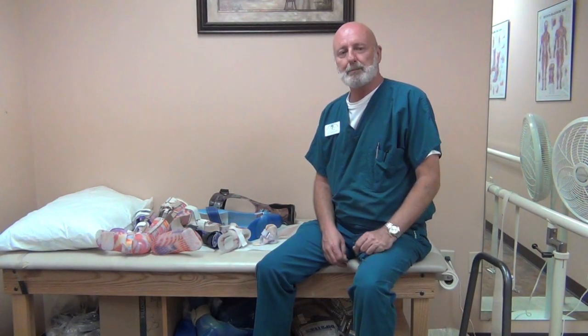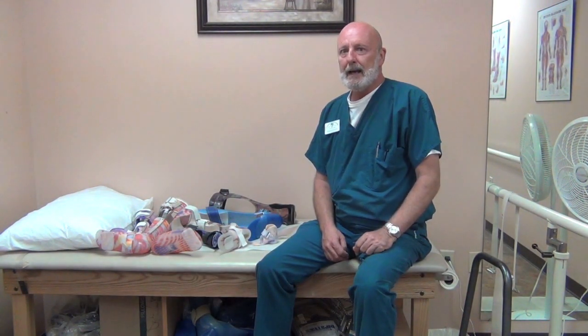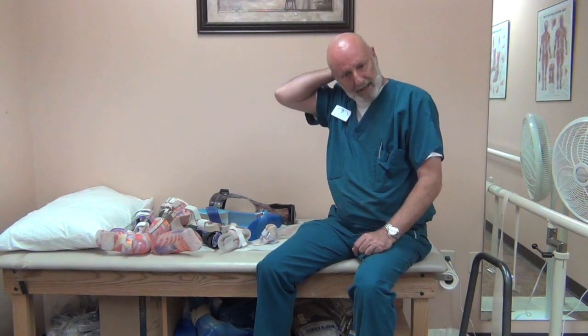Hello, my name is Kevin Matthews and I'm the owner of Advanced Orthopaedic Designs. I'm an orthotist. I've been practicing for 32 years. I wanted to talk today about spina bifida and bracing for spina bifida, primarily AFOs because that's the most popular design that we use.